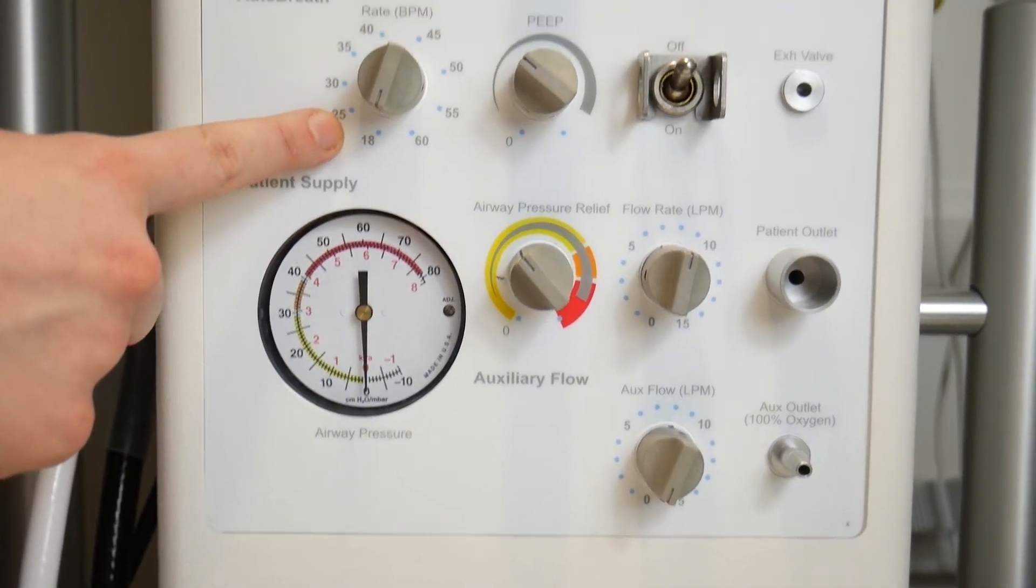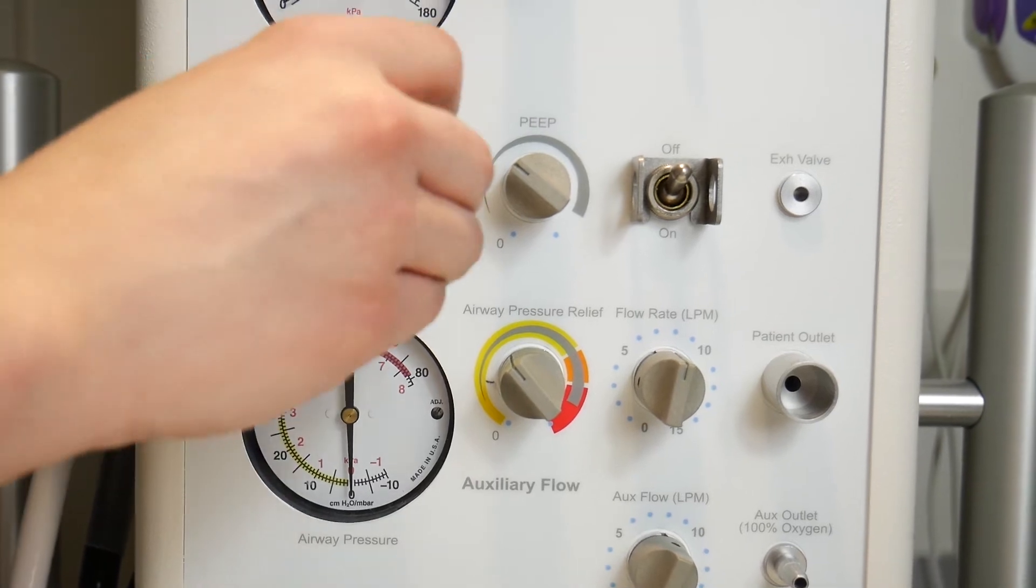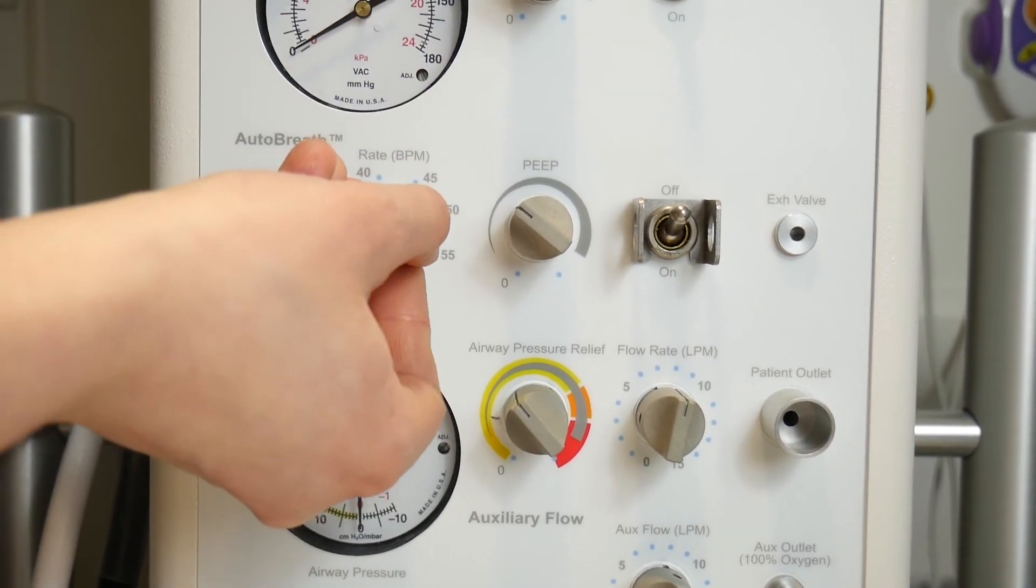Working from left to right, we have the rate. Most people start with an initial rate of 40 breaths per minute.